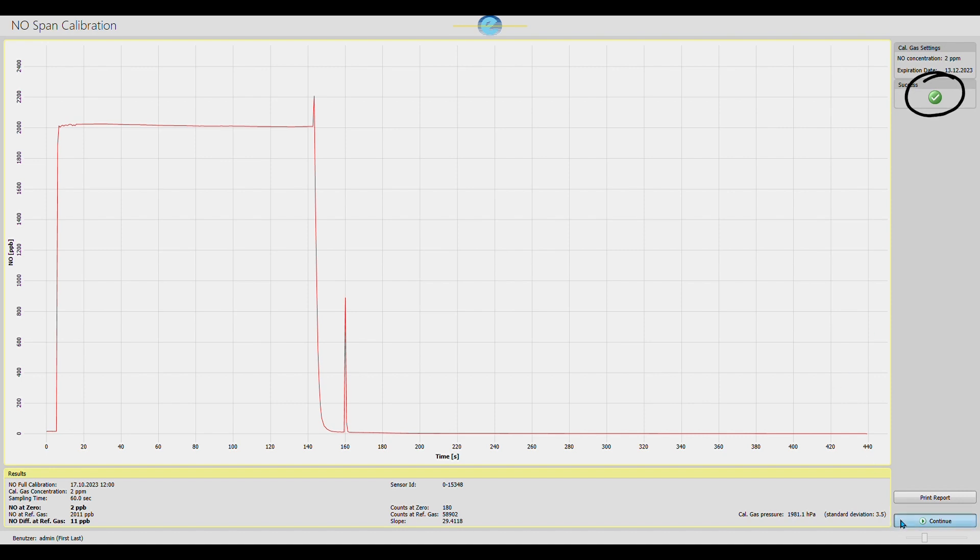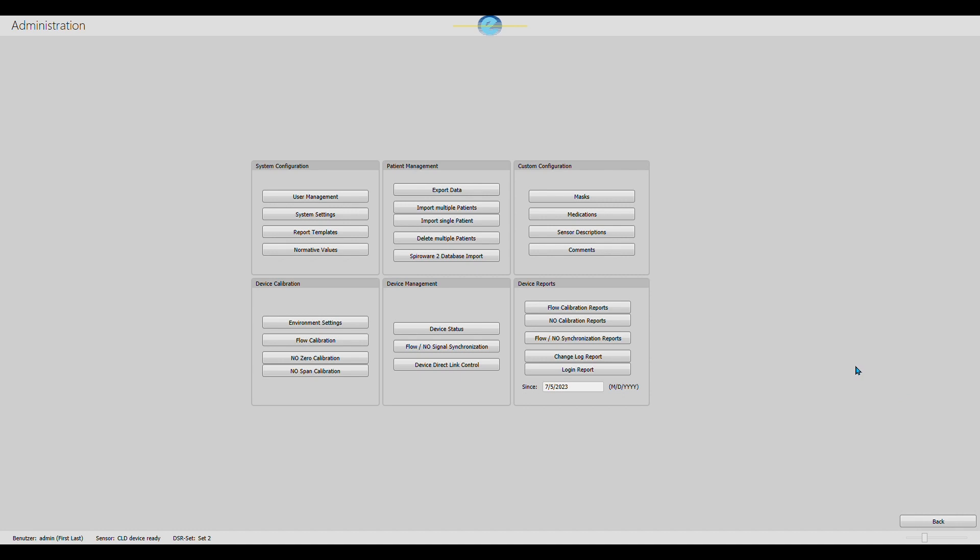Now, your device is completely calibrated and you are ready to begin your FeNO measurements.